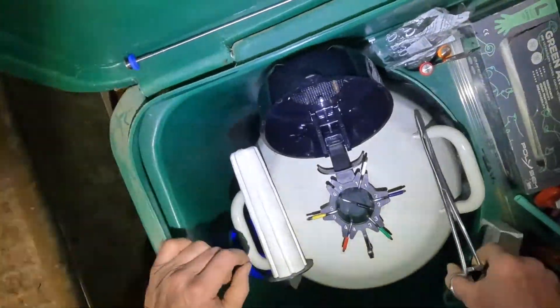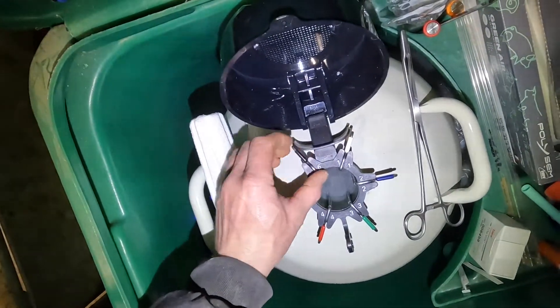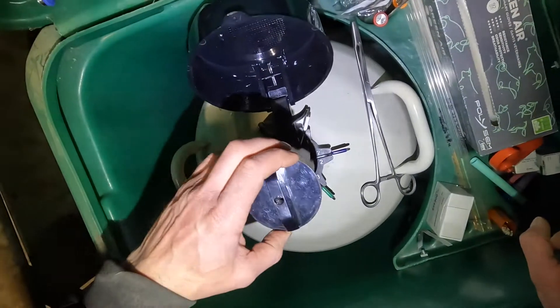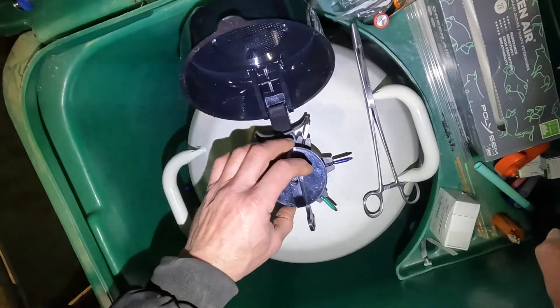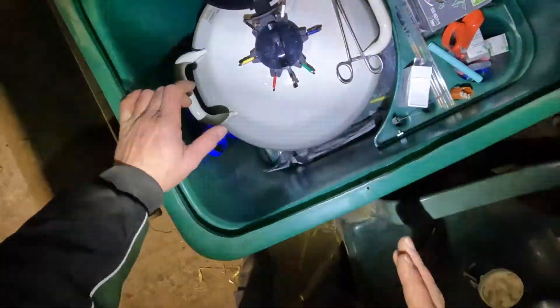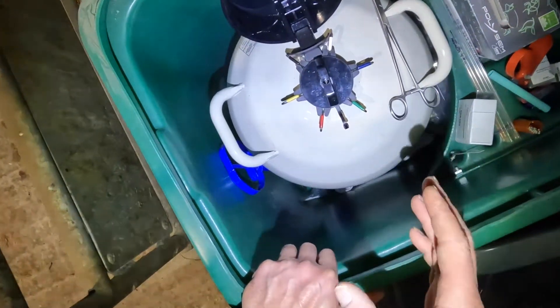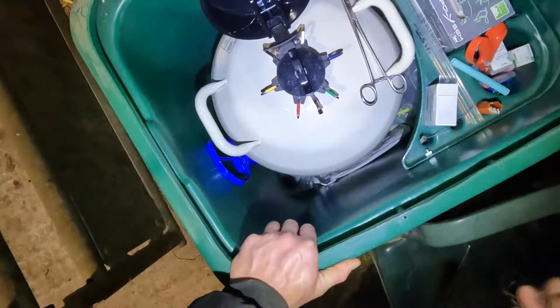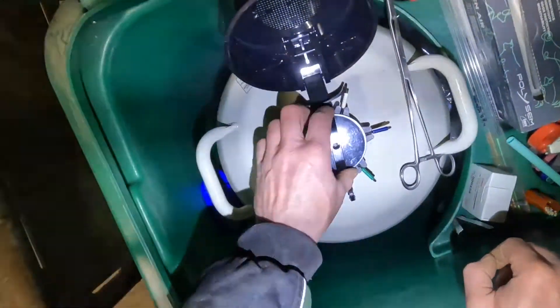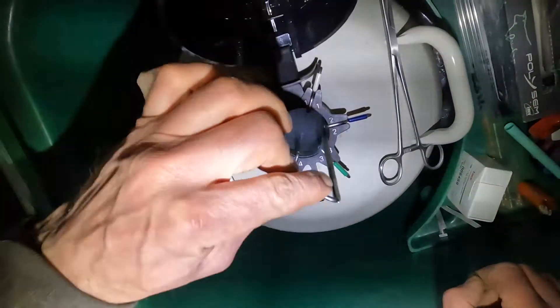Leave it there in the liquid nitrogen, put all your gear back out of your hands, put your canister back on its hook, and just have a quick look to see if anything's floating — which it shouldn't be. Replace your bung nice and gently to avoid any liquid nitrogen loss. In doing all that, you should have mitigated the risk of your straws boiling out of your canister. Once you've got your delivery sorted, box empty, inventory checked, just come back to your flask and check that your straws are still there.